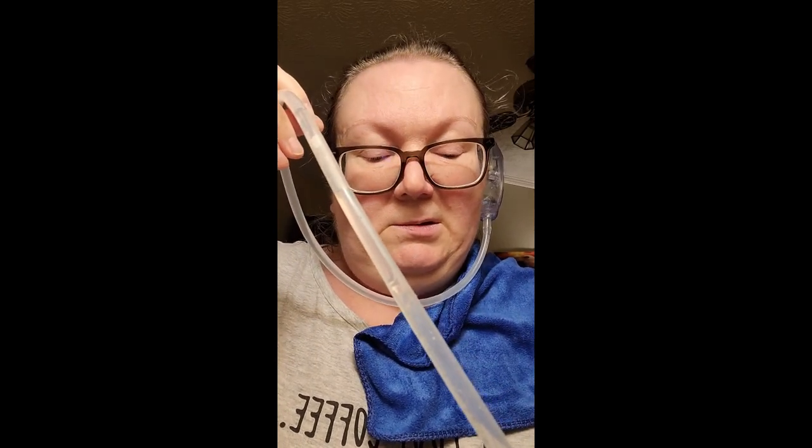I keep wanting to move too far away from it. I'm looking at the water that's going in here and so far I'm not seeing anything. It can take some time. I may not have gotten the water warm enough. Yes — ooh, dizziness to the max. I'm not seeing anything in here. I'm really dizzy.